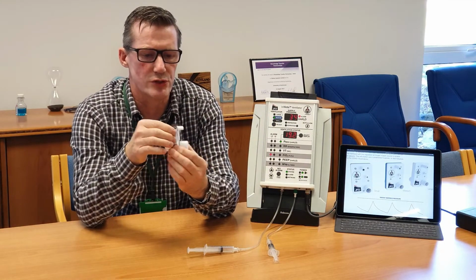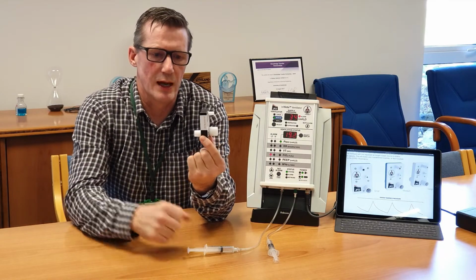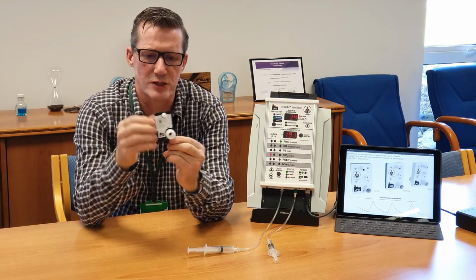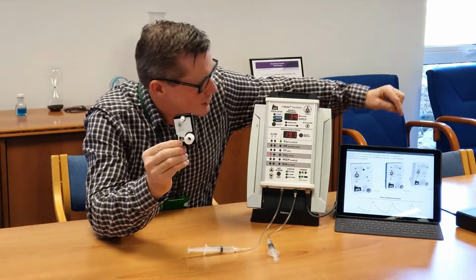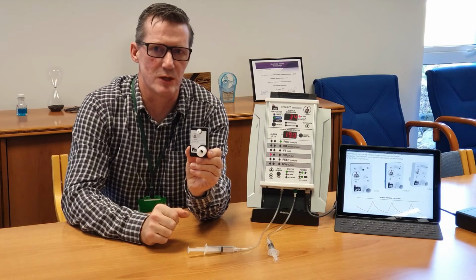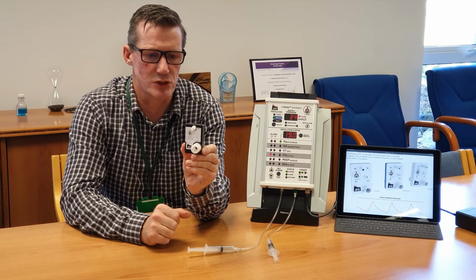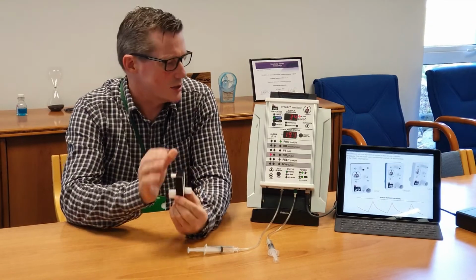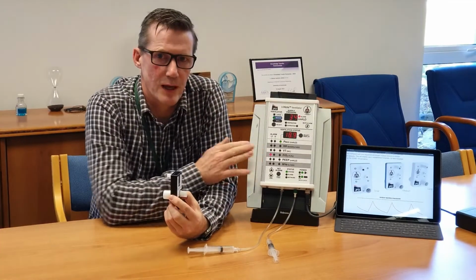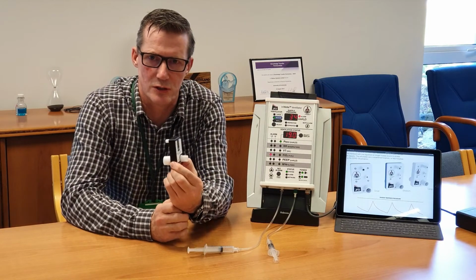The only controls that are needed are the adjustment of the pressure, and there are 3 different sizes of the ventilator block: a small, a medium, and a large. And they are selected based on the size of the patient and the desired minute volume. Very simple to set up and use, very easy for clinicians to use, monitored continuously by the alarms panel, and the gas panel is quite clear about how the air and the oxygen are adjusted.